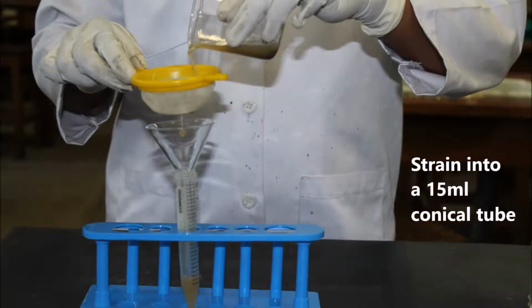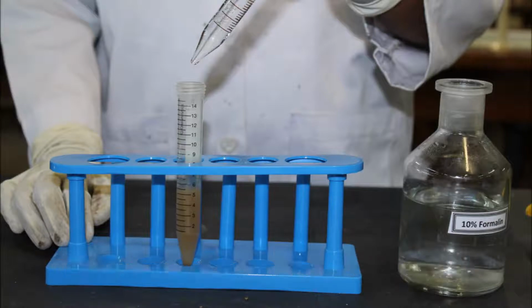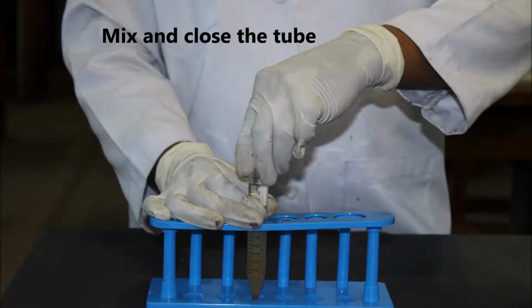Strain the solution into a conical 15 ml centrifuge tube. This will remove the large fecal debris. Add some more 10% formalin to bring the volume to 10 ml. Now add 3 ml of ethyl acetate to the suspension. Mix the suspension and close the tube with the cap or a rubber stopper.